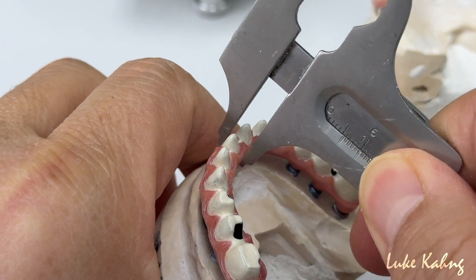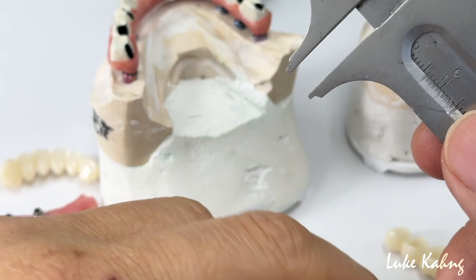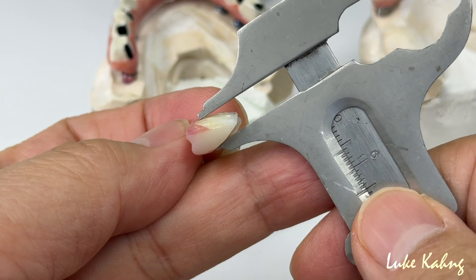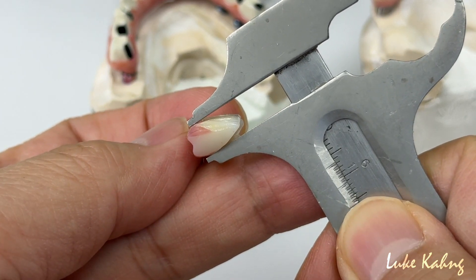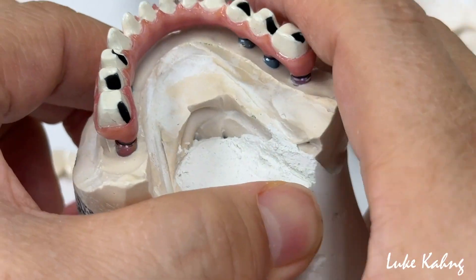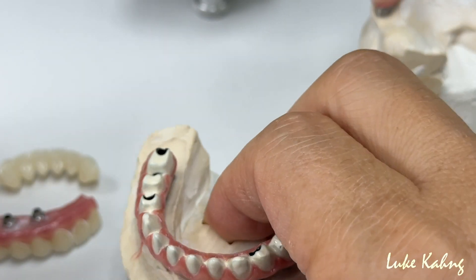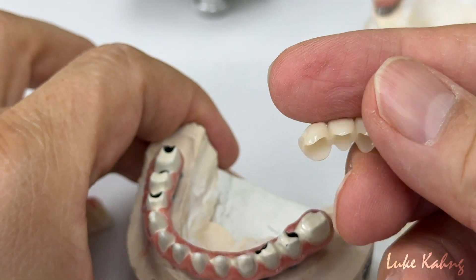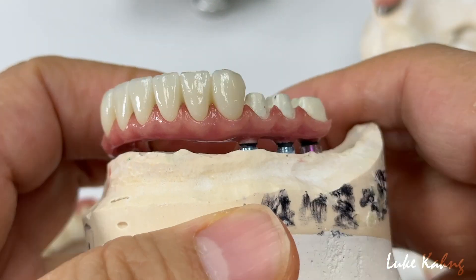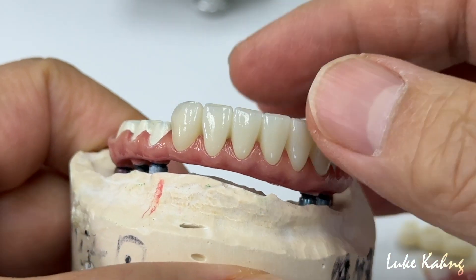All the way down. We got this — see, it's even thicker on this one, it did not go down. So I have to increase a little bit more, go down three-tenths of a millimeter more, thinner. Better lingual contour, go down. And here's a huge pontic — same thing. On top of that we fabricated a six-unit bridge because of a single unit retention issue, so we made it a six-unit. It's more adaptive between the tissue and zirconia, so we don't use any composite at all.